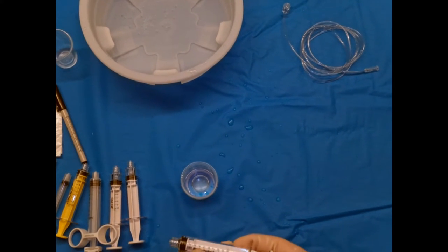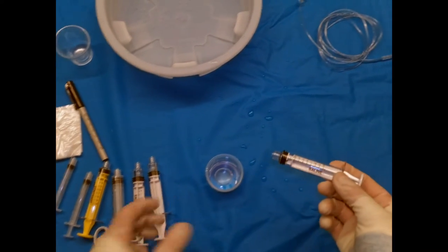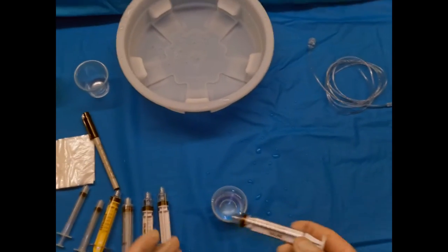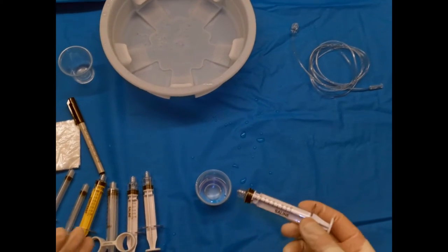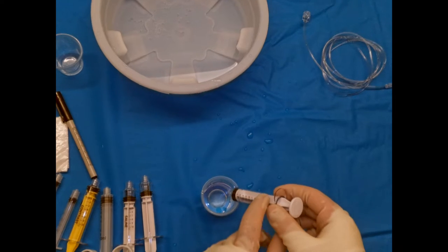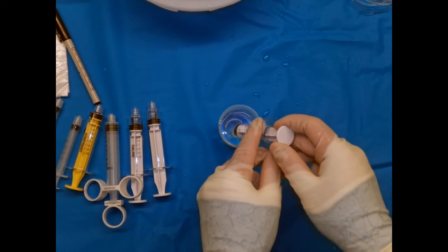So I'll show you exactly how that works. Number one, if you're pulling up—this is just saline in a cup, but it can be if you're pulling saline from a line or from a waste management system—the principle is the same. You're going to get your syringe into place, you're going to draw back.